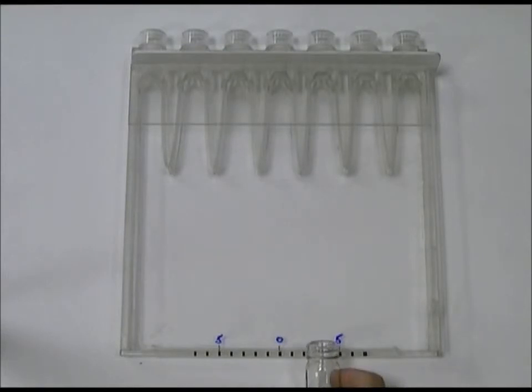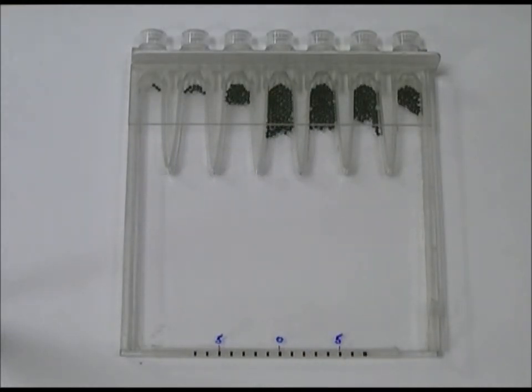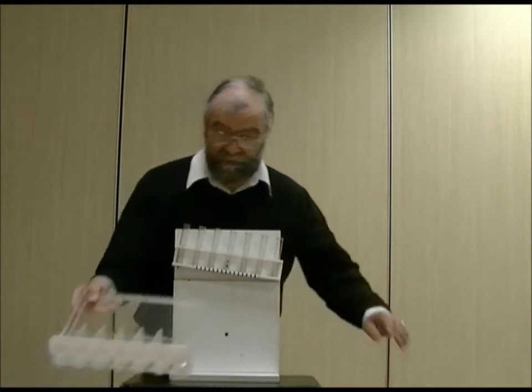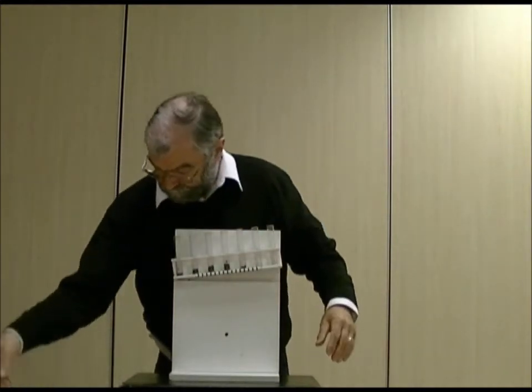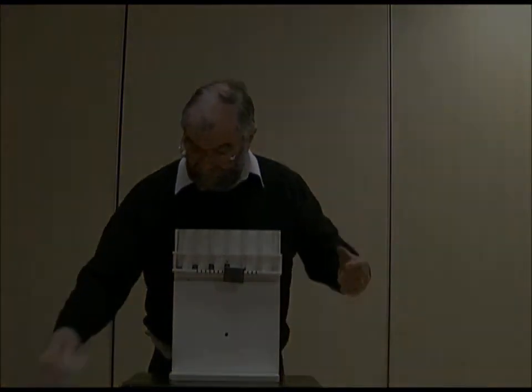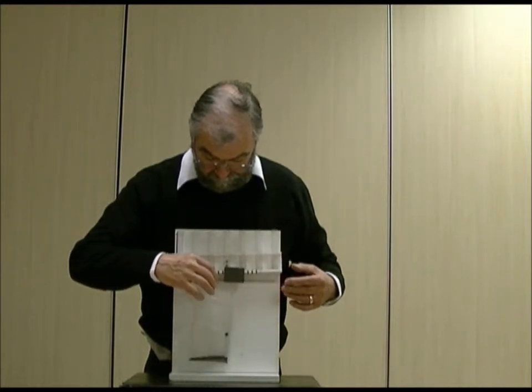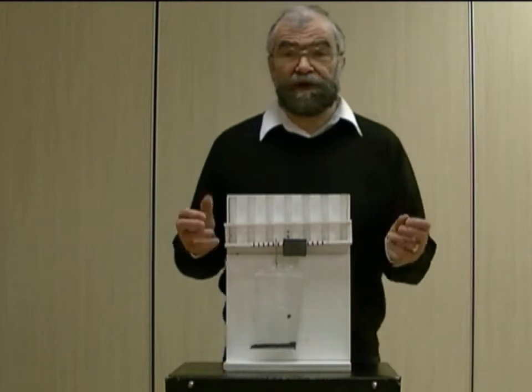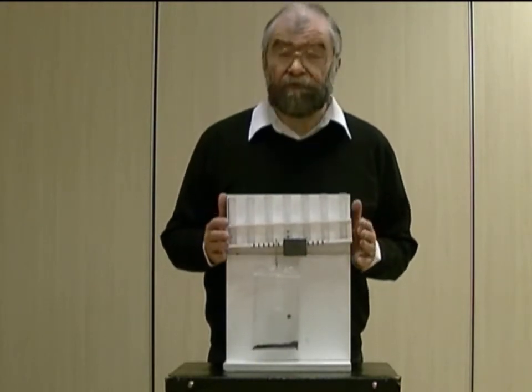I'm going to repeat another run with the gamma-ray interacting at exactly the same point, three on the right. Here is the lead shot representing the light being collected by all the photomultipliers — we've got another distribution very similar to what we had before. Repeating the same thing to find the balance point, this time we find the balance is at exactly three. So you see that each time we perform this measurement we get a slightly different answer. On average it was three, which is correct, but it varied above and below that from about two and a half to three and a half.